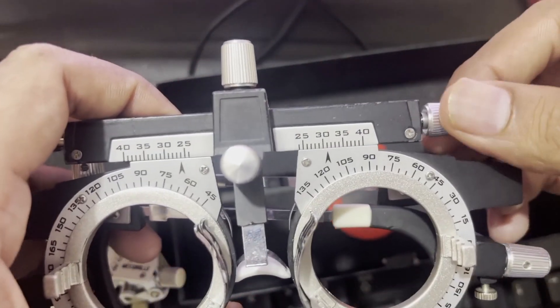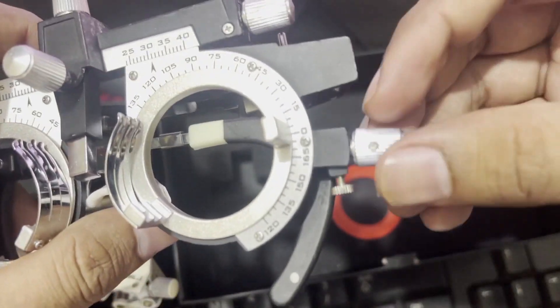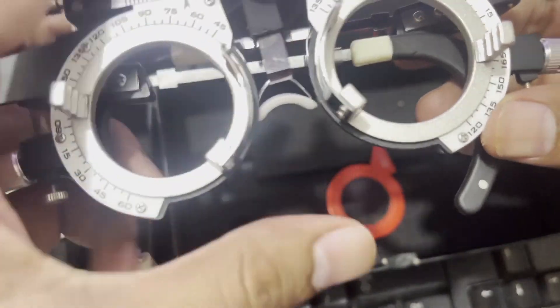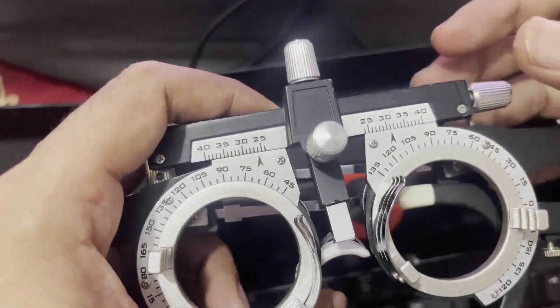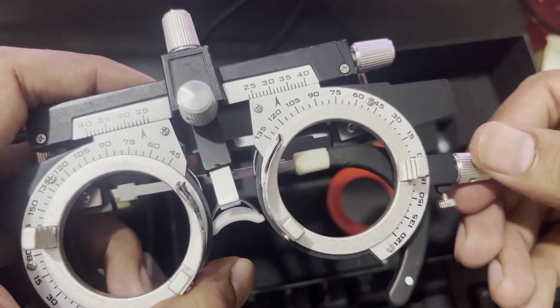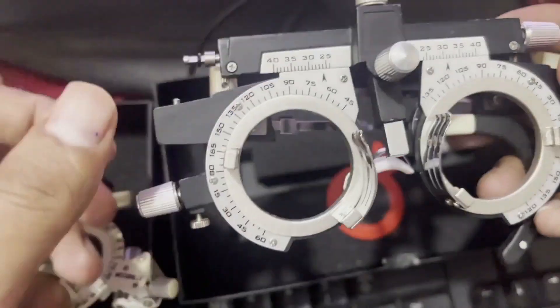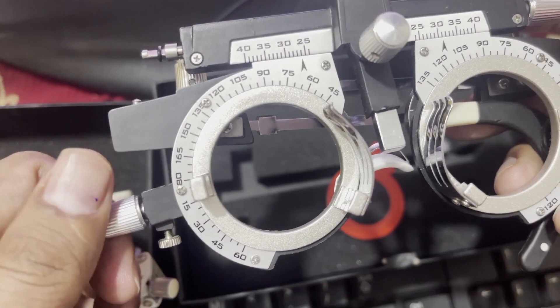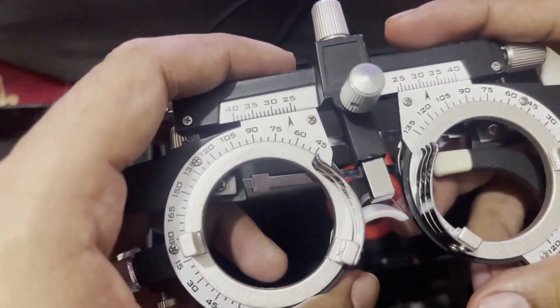Now we will discuss the different adjustable settings. You can see there are different rotatable knobs — this knob can rotate, this one can rotate, this one can rotate. We will learn about the different functions of these knobs. The first knob we will discuss can be rotated to adjust the cylindrical lens.